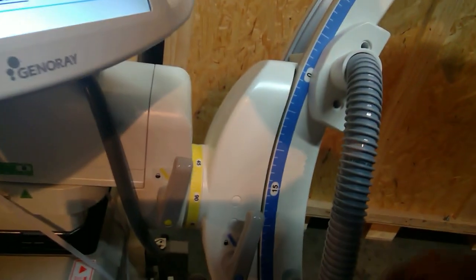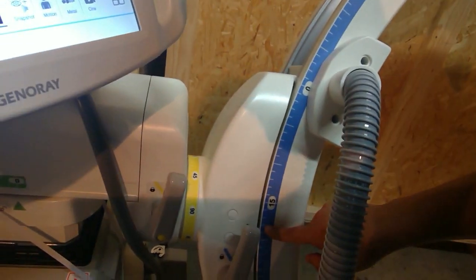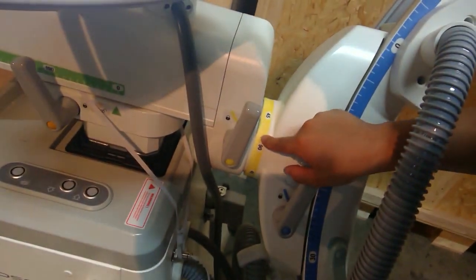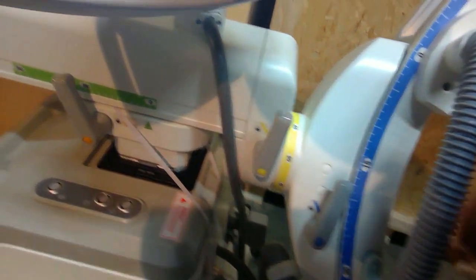This system is color-coded with different colors, blue, yellow, and green, so that you can find the handle moving very easily.